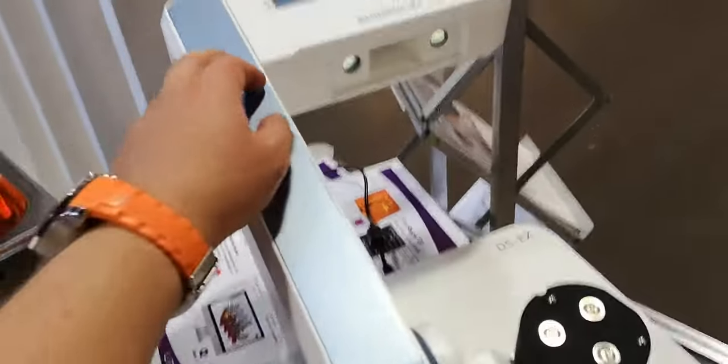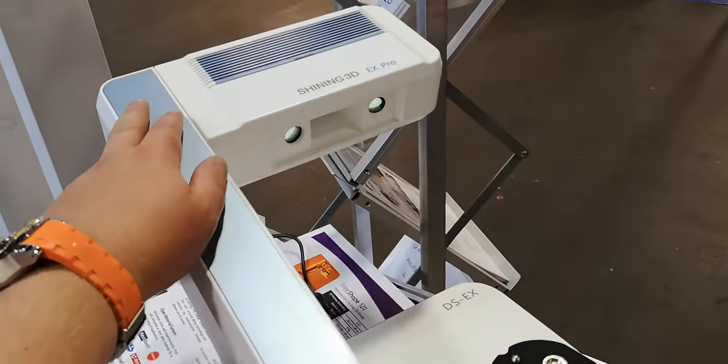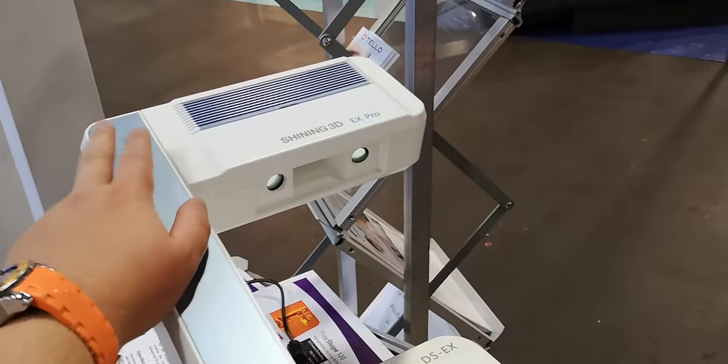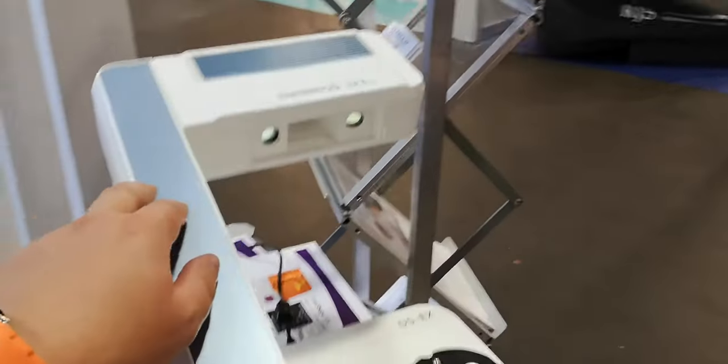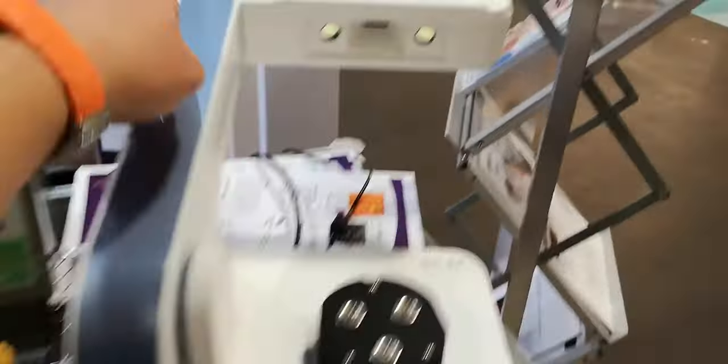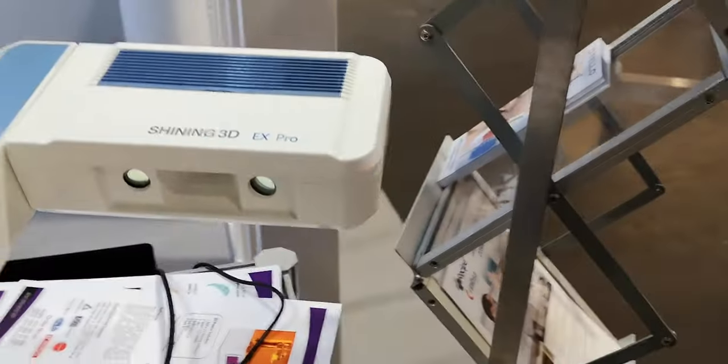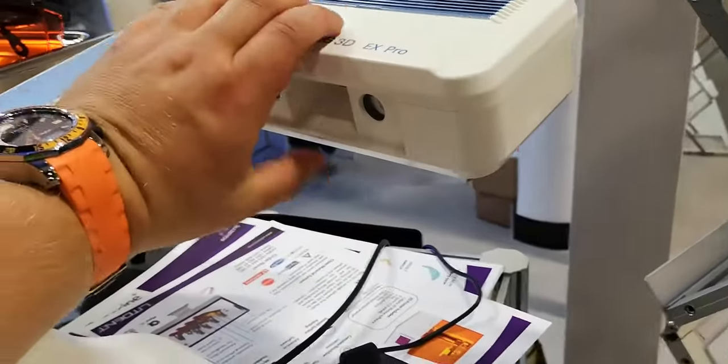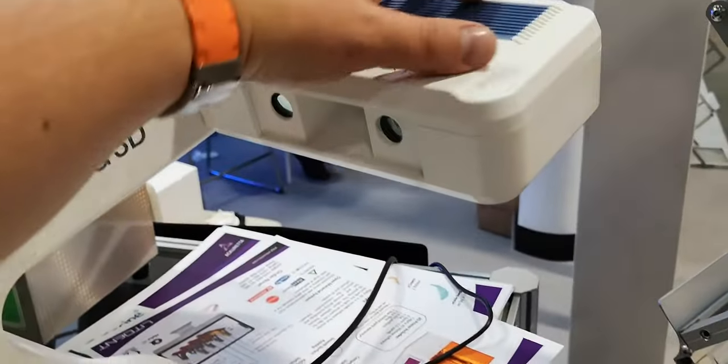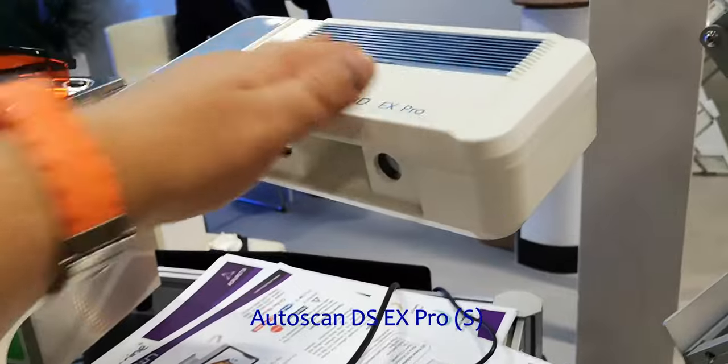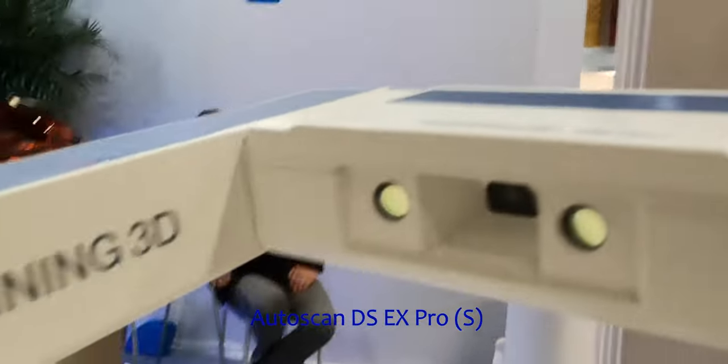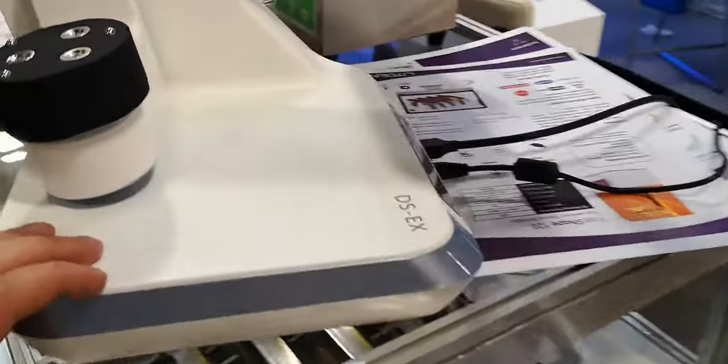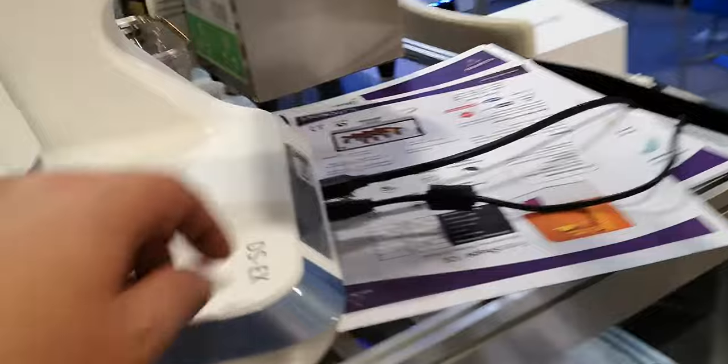The first thing I noticed, but not from the first time, is a different color here. Not that much. Maybe it's more here, the bulge. It's not that flat, but it looks like the same. So it's easy to operate. Let's turn it on.